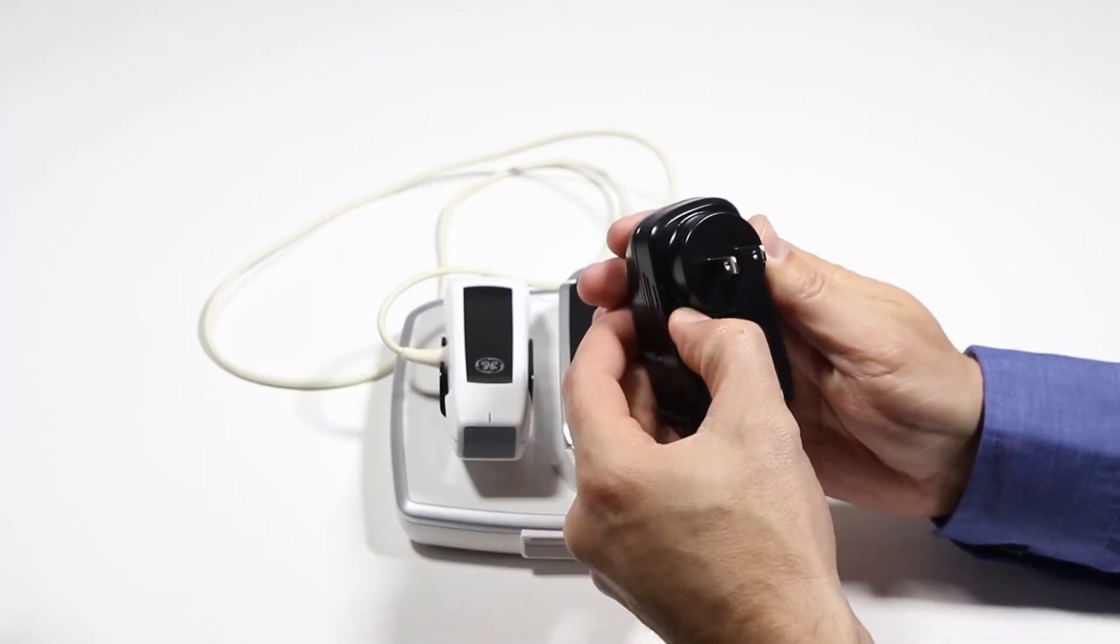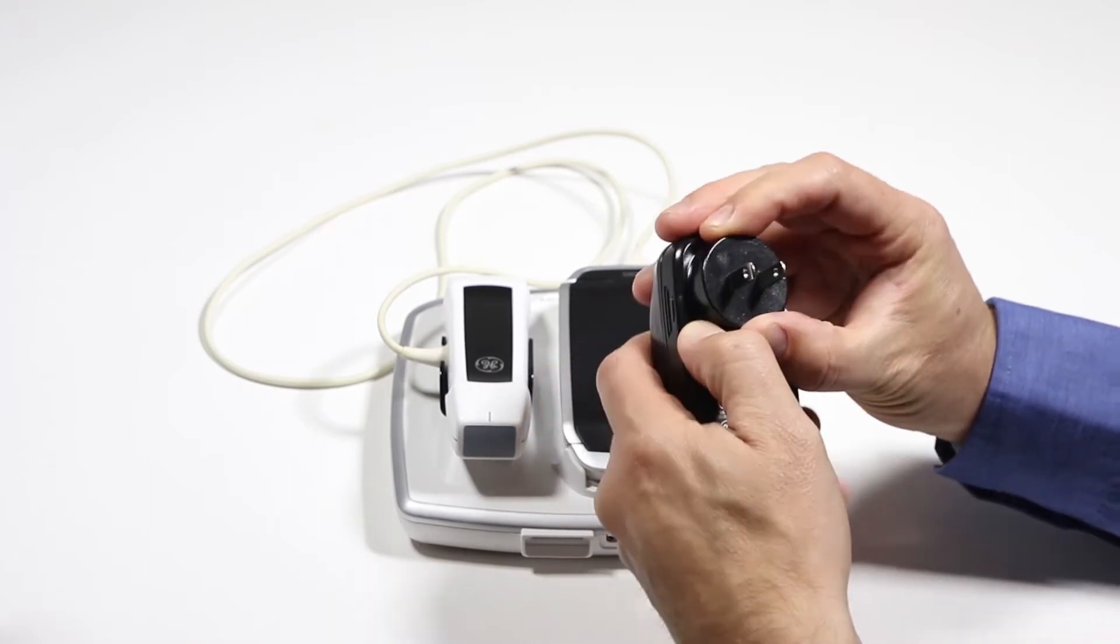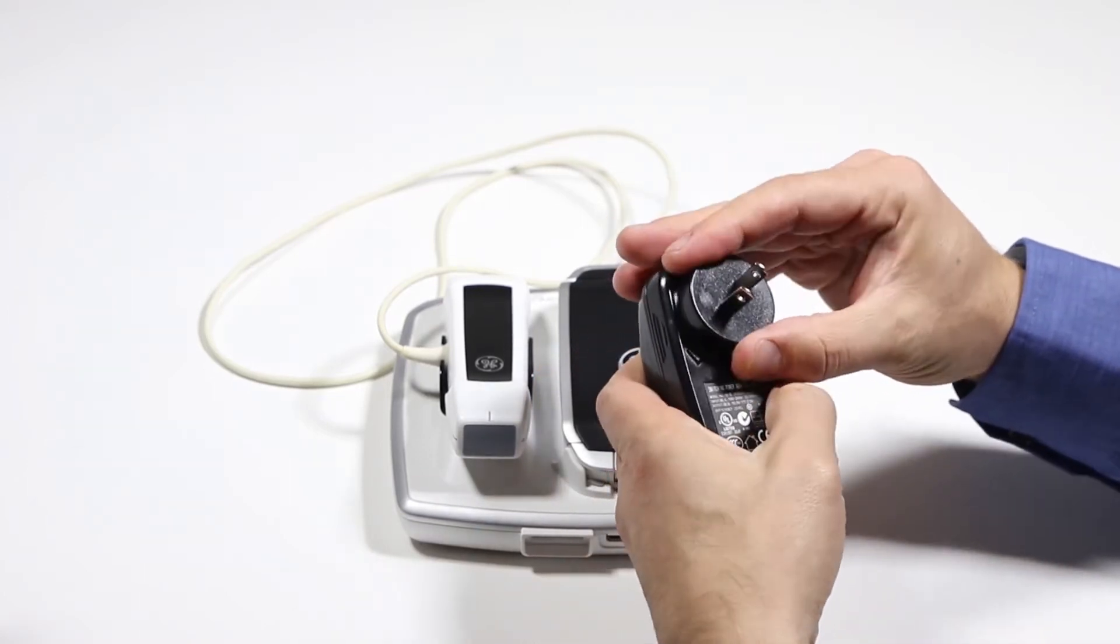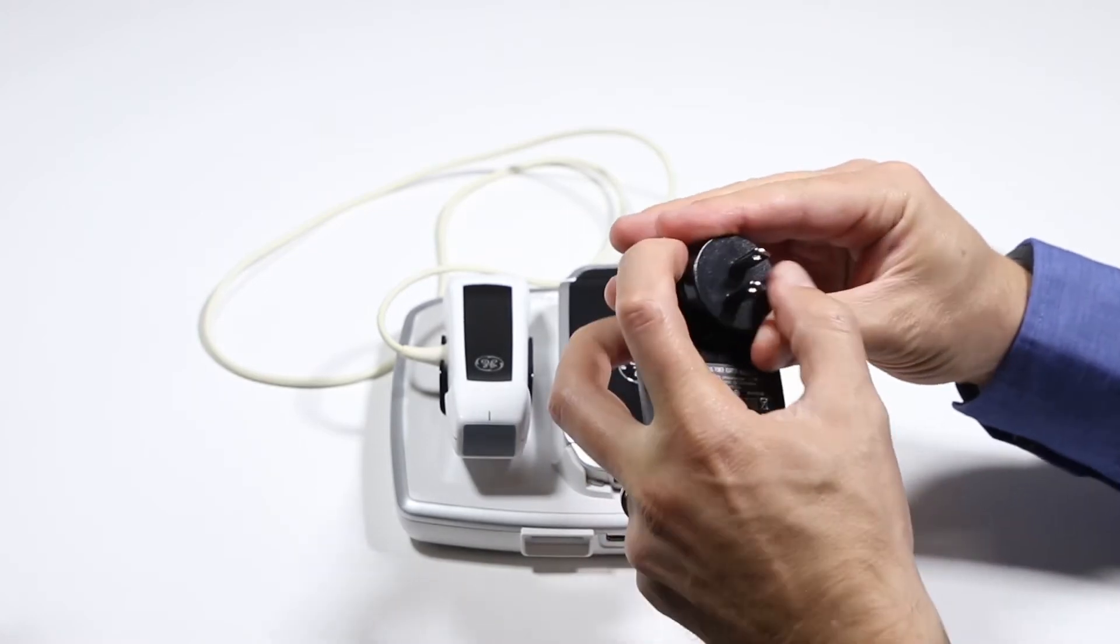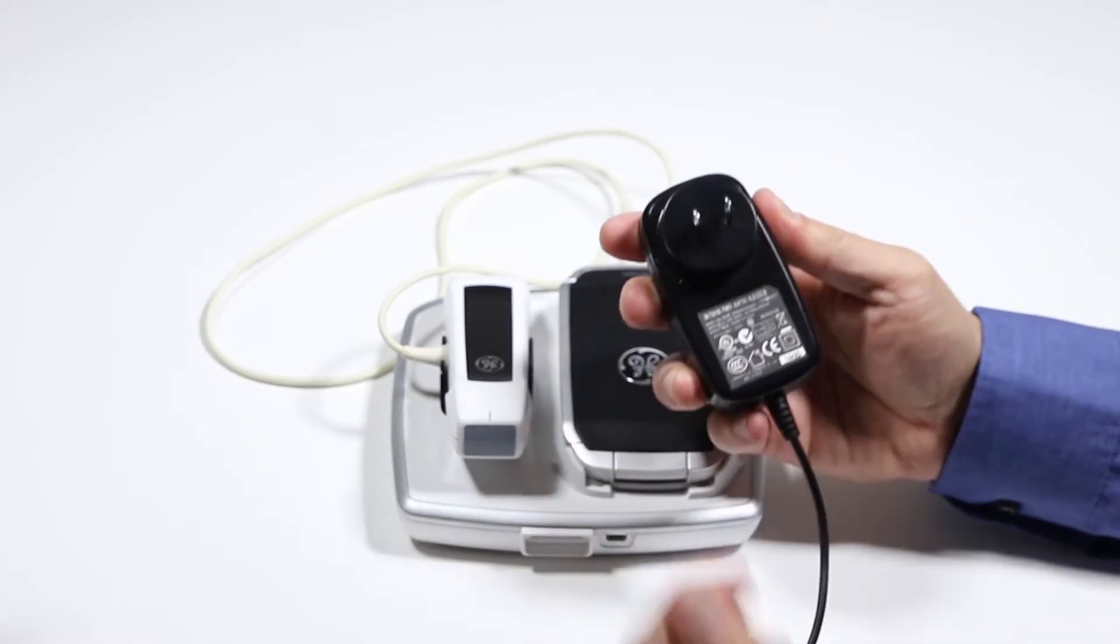To release that, you're going to push that down. If you leave the country and you need to charge it, push down on that little button there and you can pop it right back off, snap a new one on, and you're ready to go.